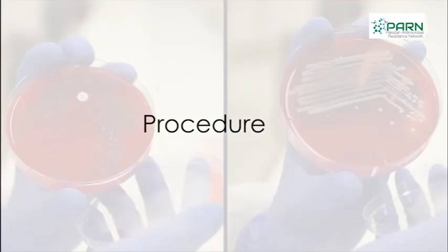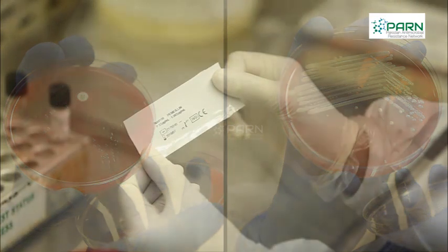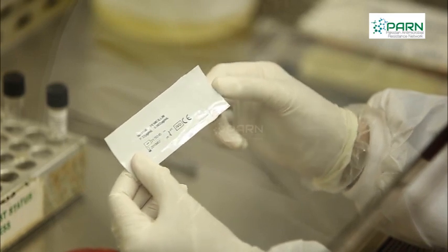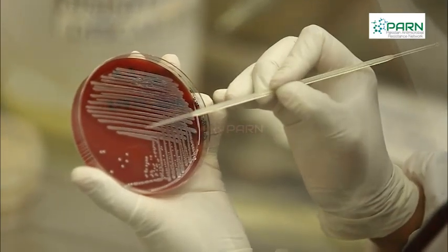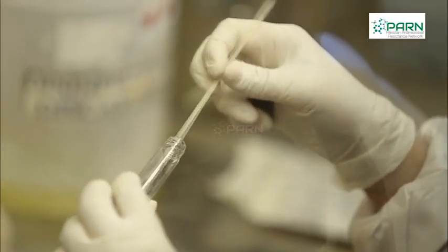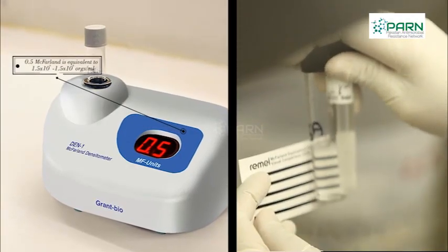Procedure: Subculture the test organisms on a non-selective agar and incubate for 18 to 24 hours. Take out the strips from the freezer to bring it to room temperature at least 30 minutes before the test is performed. Pick several well-isolated colonies from non-selective agar medium and emulsify in sterile saline to prepare a suspension with turbidity equivalent to 0.5 McFarland standard.